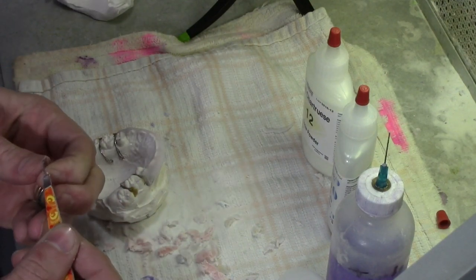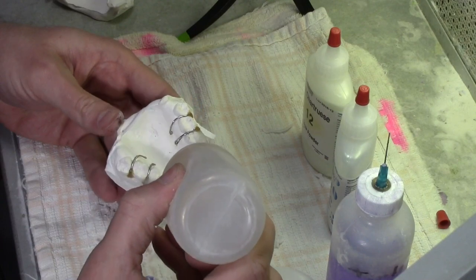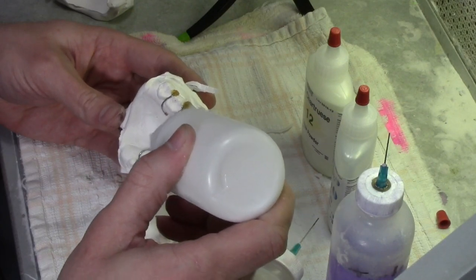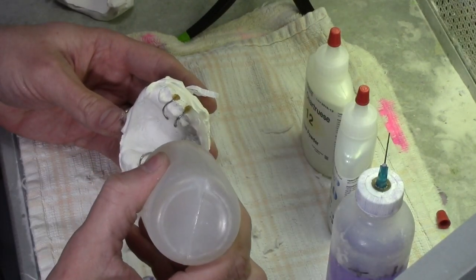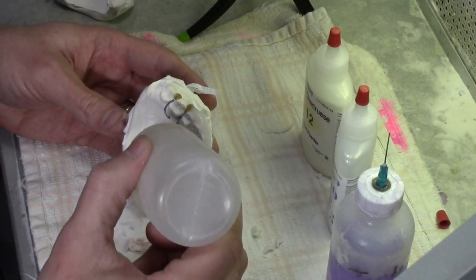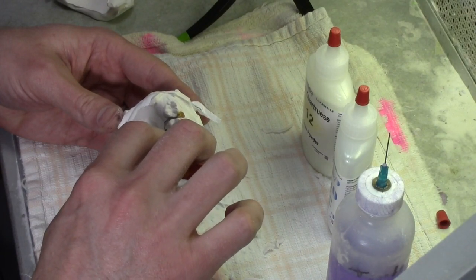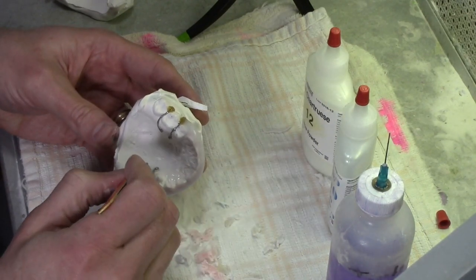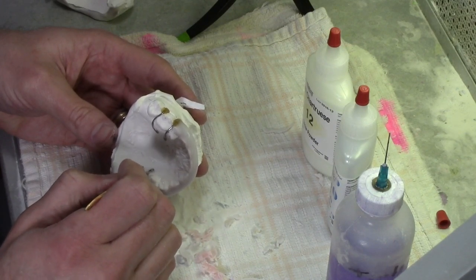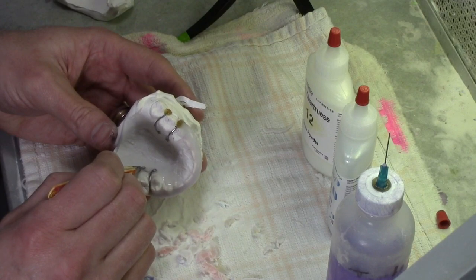I'm going to show you this one. So this is a polymer color. When you put the name on the tissue side, you have to think about the way it's going to be read — you actually have to put it in backwards and upside down. But once you get used to doing it that way, it's fine. This is Blue Pearl and it's trying to slump on me again. This is one of my favorites.